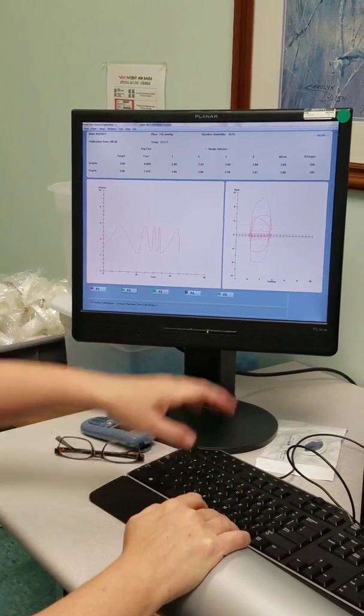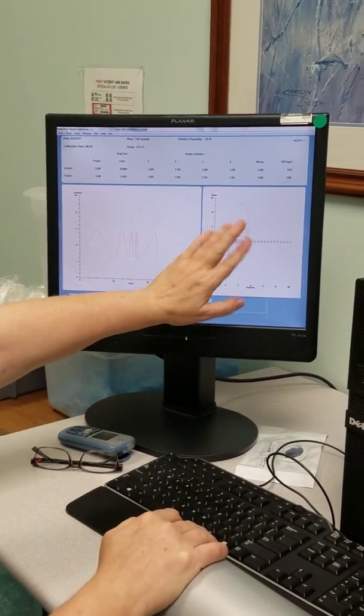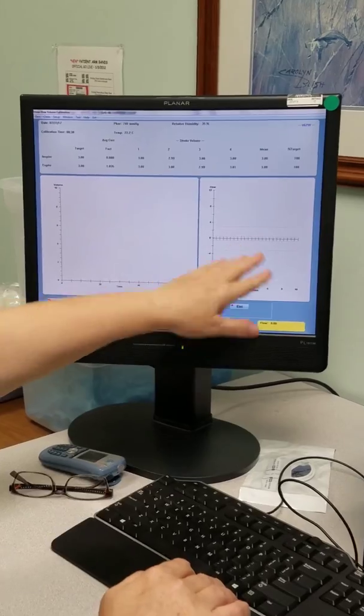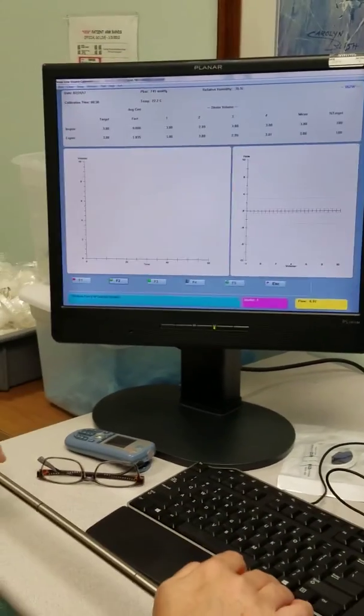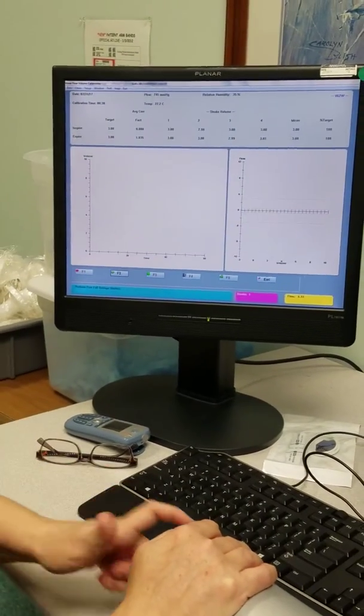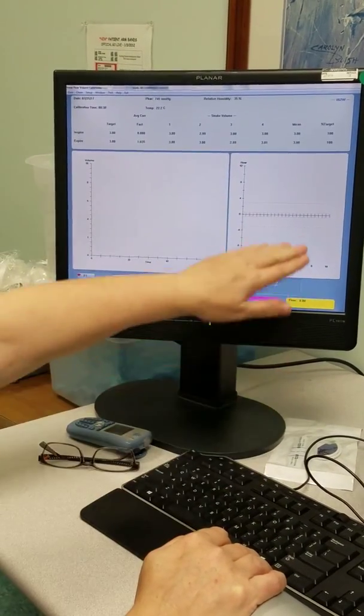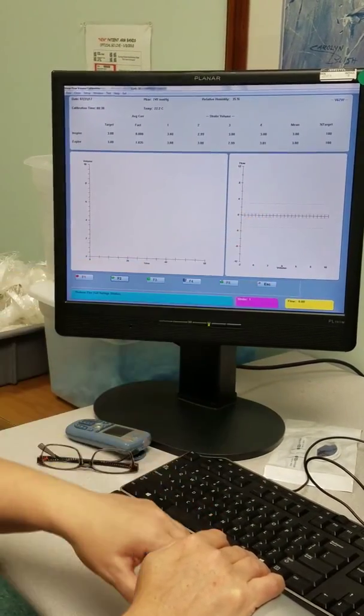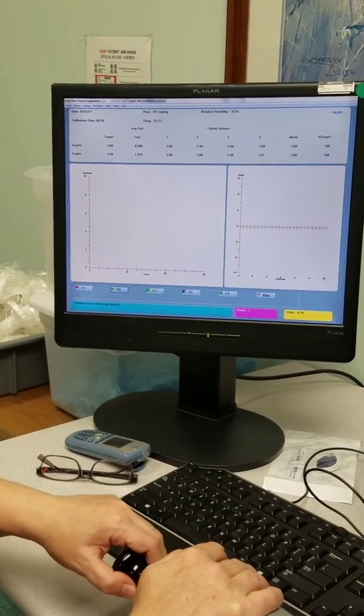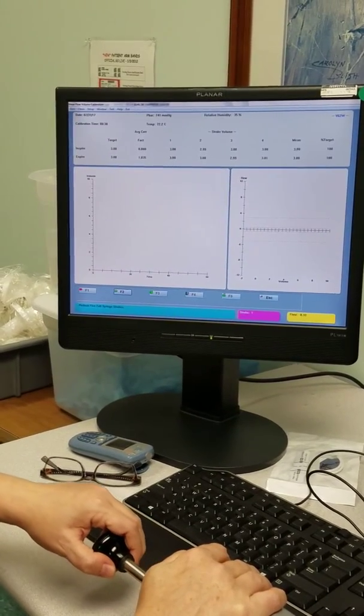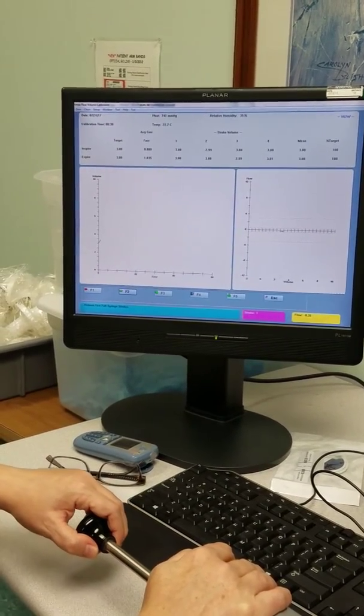This screen comes up. Same thing. You get two freebies. Now we're going to give it varying flow rates. Start with a very, very slow one first.